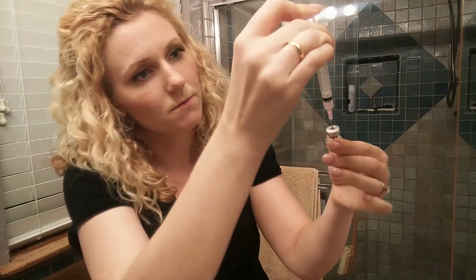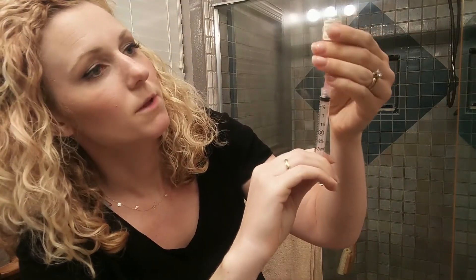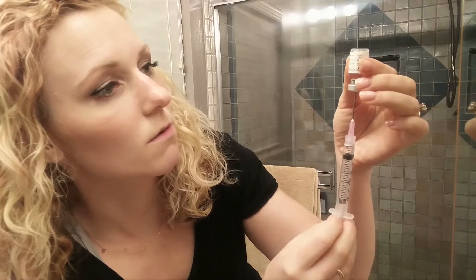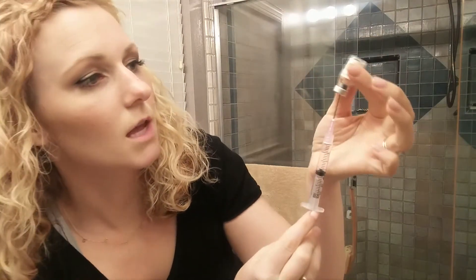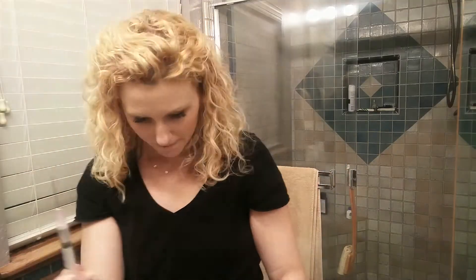Now we are going to invert this guy again and we have to pull out all of the liquid — this gets kind of tough. You want to get the needle as far down as possible so that when you're pulling out the liquid, you get all of it. It can be tricky. I think I've gotten pretty good at it, honestly. Pull that syringe way down to make sure there isn't any extra liquid. Angle it, make sure everything's out. We've got to put the cap back on this crazy needle.